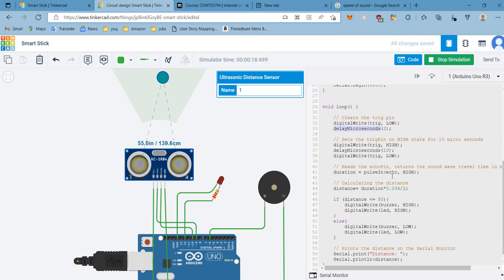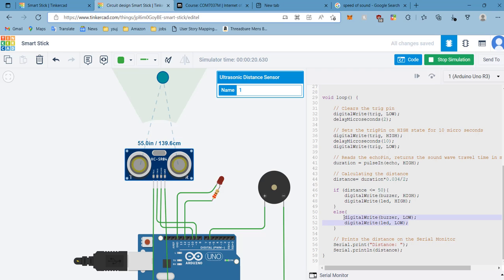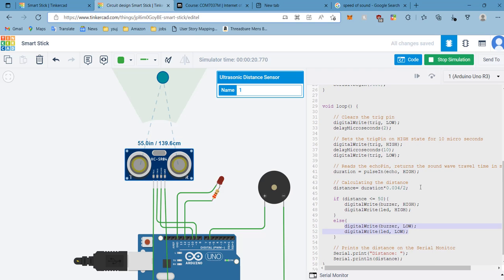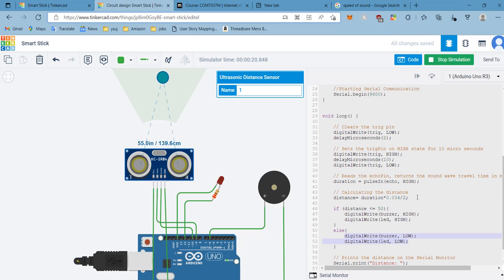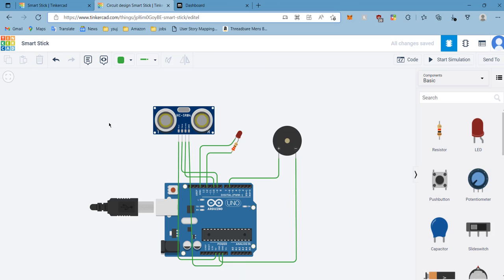That's how it's been working. If the distance is less than 50, then it starts buzzing. But if the distance is more than 50, it does not start buzzing. This is how it goes.